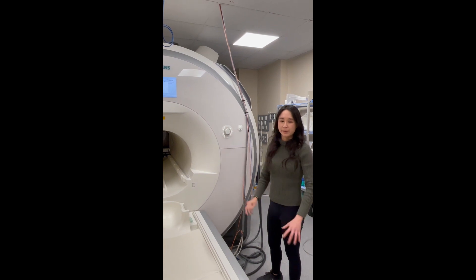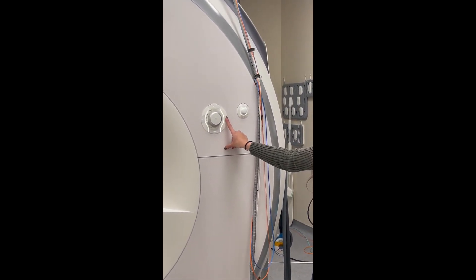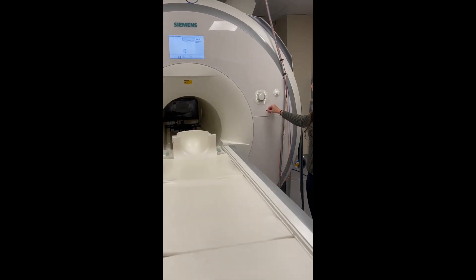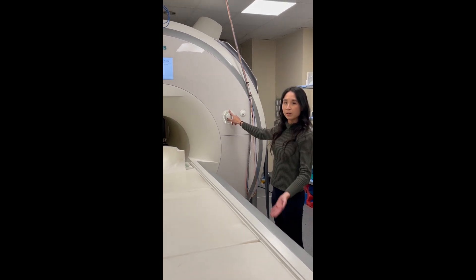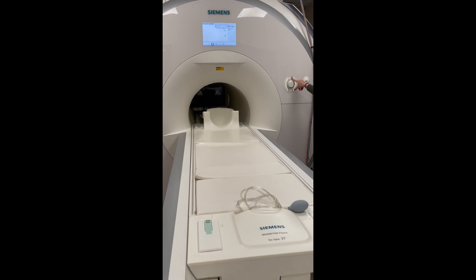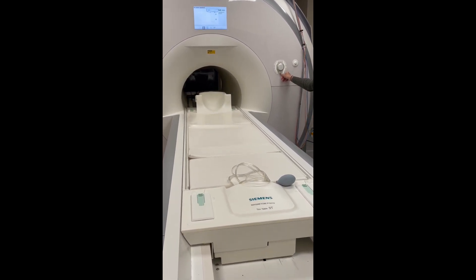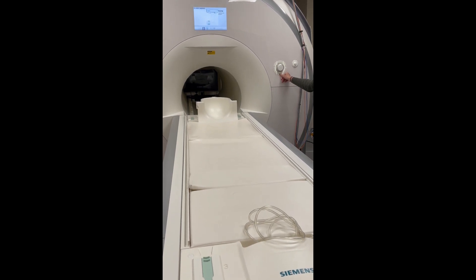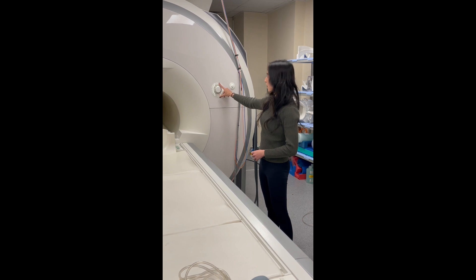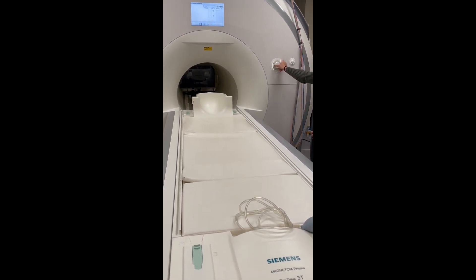The bigger wheel controls control the bed and the table. The table is the entire unit; the bed is the part that moves up and down, in and out. Press and hold will take the bed to the all-the-way-up and all-the-way-out position. The top button will move the bed all the way up and in. The bottom button takes the bed out and down — press and hold, it will come all the way out and then move down. The center wheel controls the bed like the top and bottom buttons, except you can also control speed.